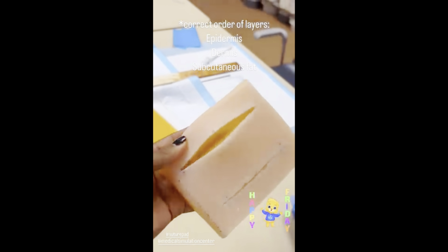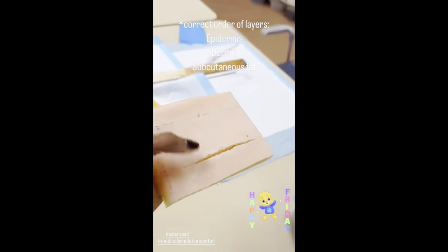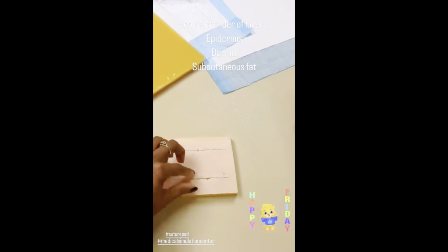This is the old one, so same thing, but you just cut them into little rectangles and then you make slits in them so that you can use them to practice suturing and closing wounds. Yeah, so that's what we were making yesterday.